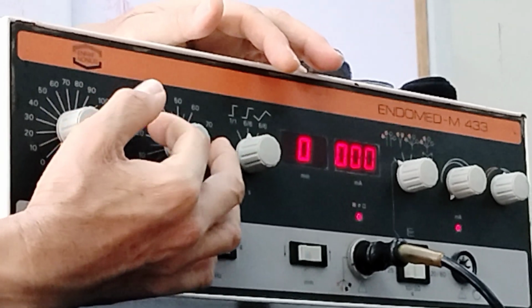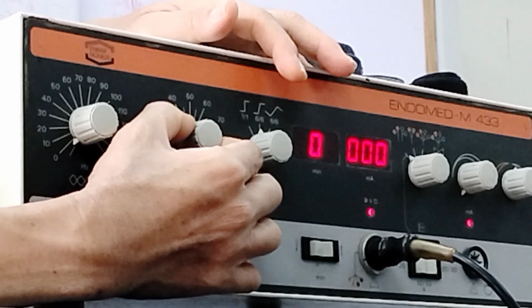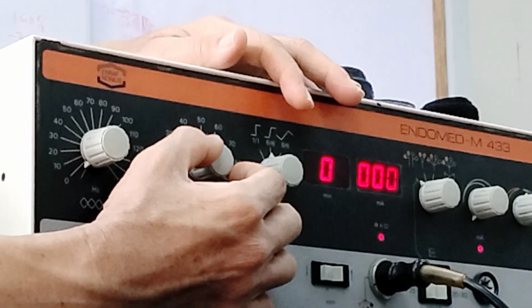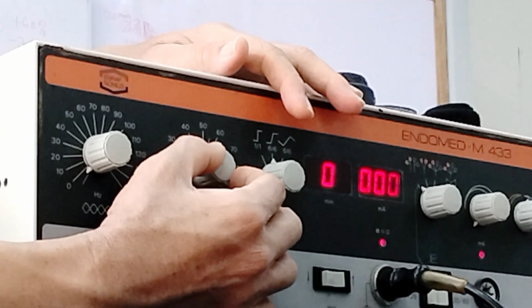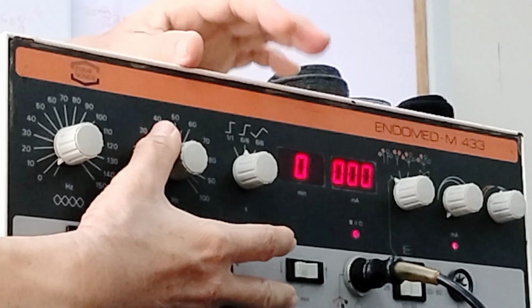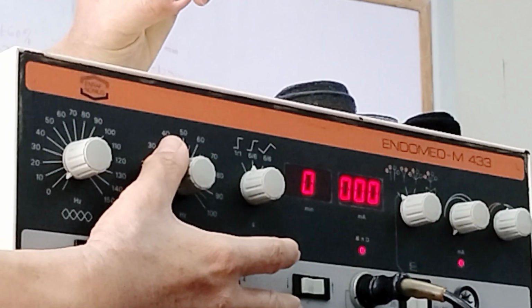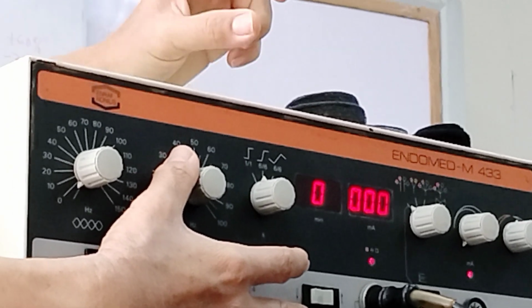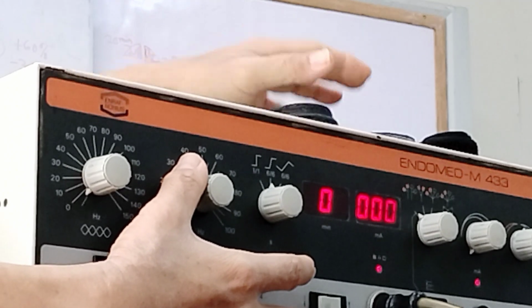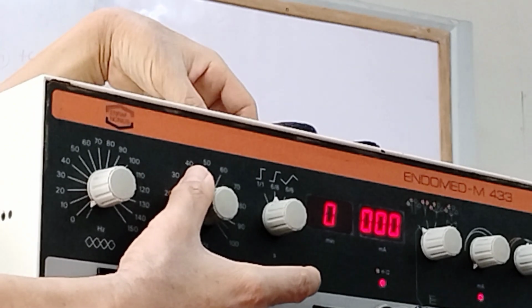The same, if it is still acute, you can choose a higher spectrum frequency. If it is chronic, then a lesser spectrum frequency or shift frequency. Okay? So again, with regards to the frequency, it's up to your discretion as a therapist whether you're going to have a frequency that is constant or varying. There are no researchers stating which is more effective, whether varying or not. But it's up to you to decide.